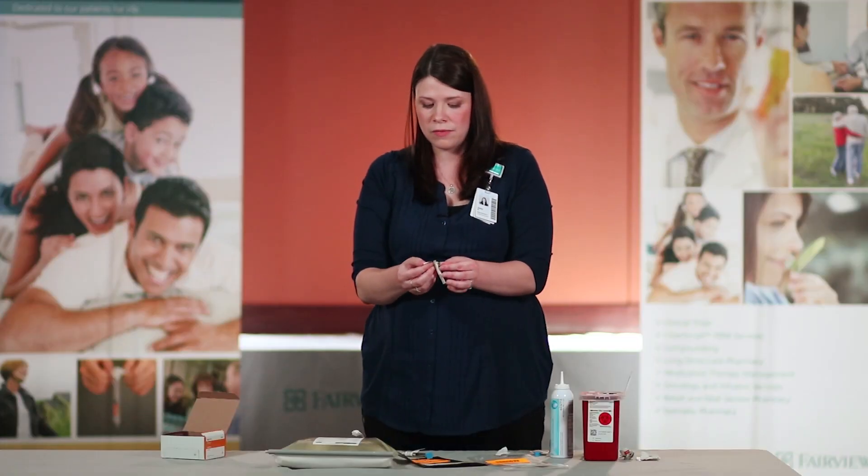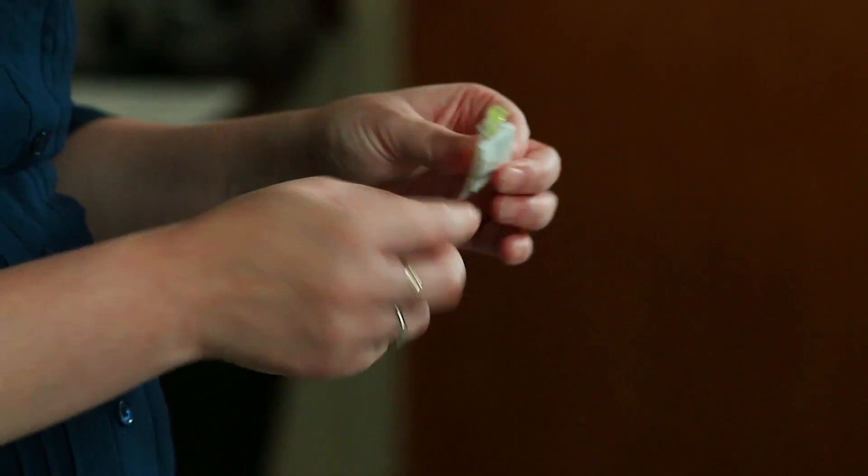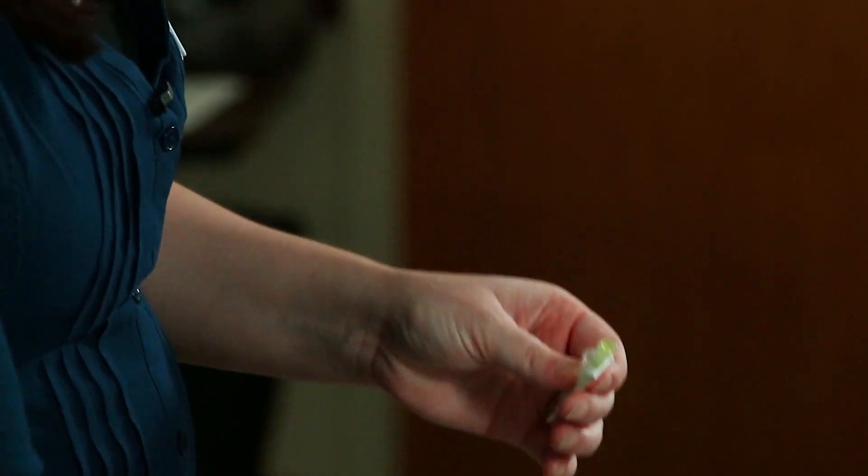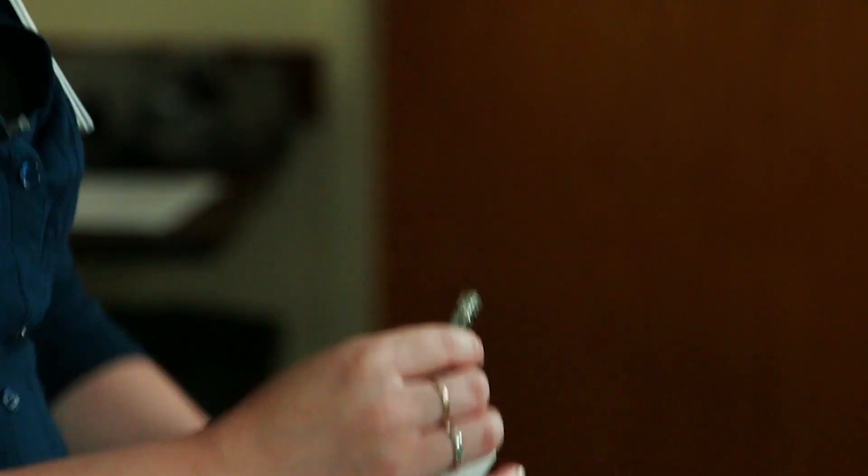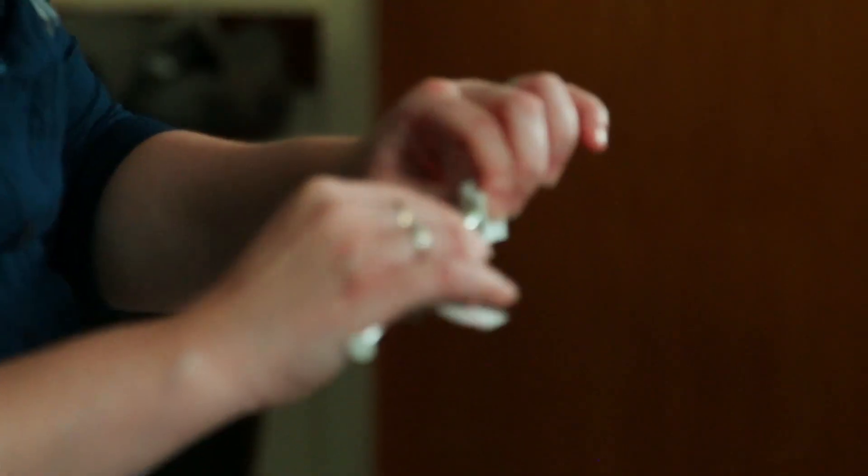Open your needle ensuring that you are not touching the hub of the needle. Unscrew the cap of the medication and twist on the needle.